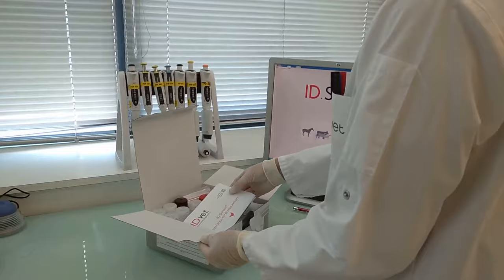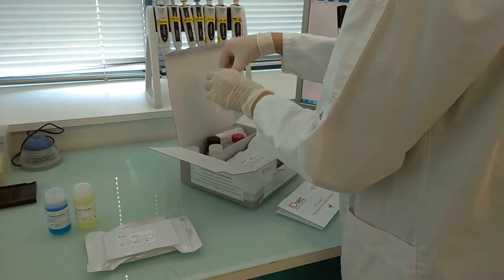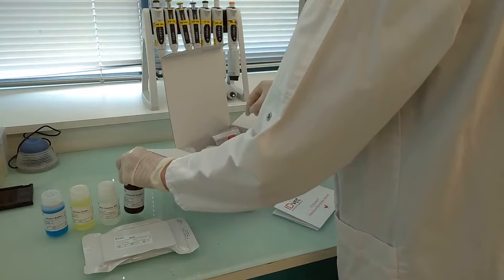The kit reagents include ELISA plates in which the samples to be tested are added, and several buffers. The blue one is for sample dilution, the yellow one is for conjugate dilution, the transparent one is the concentrated wash solution, the brown bottle is the substrate, and the transparent one with the red cap is the stop solution.